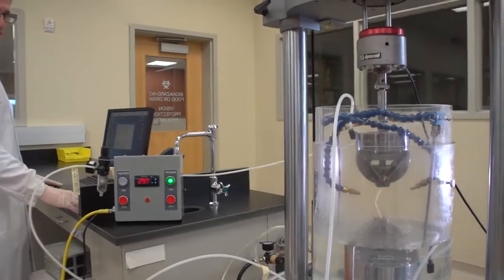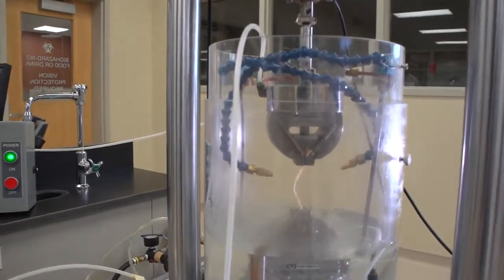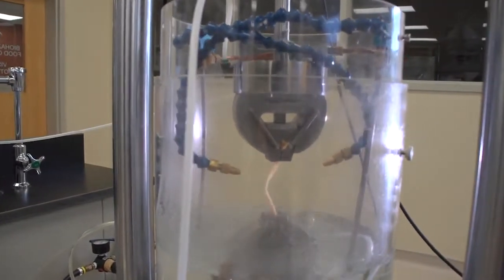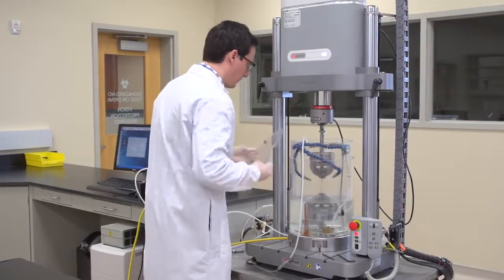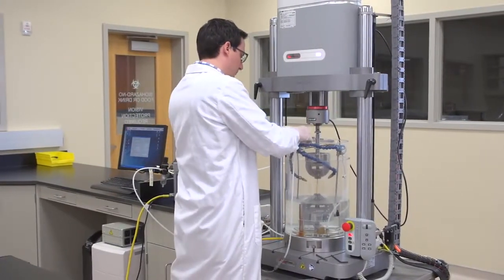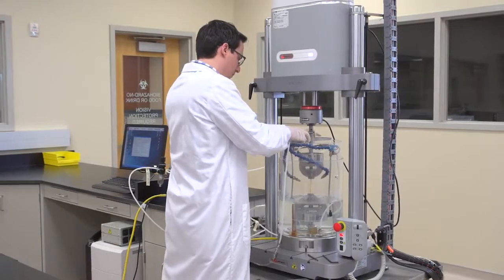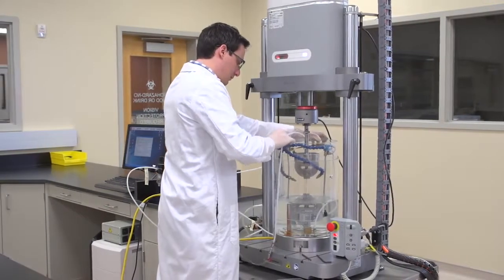The purpose of the study was to compare the properties of the electron beam sterilized tendons to aseptic tendons to see if there indeed were any differences in the biomechanical behavior. We adapted an environmental chamber on this system that can create a physiologic environment for testing.